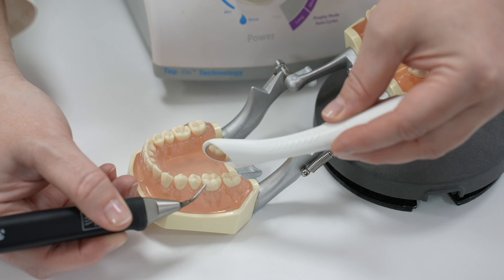If not, turn the water and powder up a very small amount and try again. If nothing happens, the airline may be blocked.